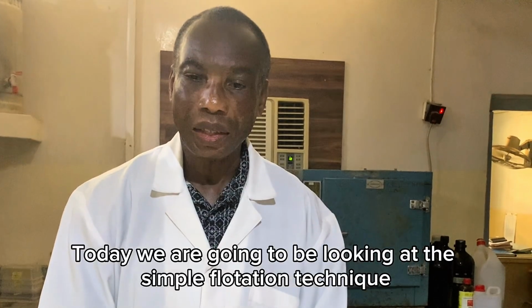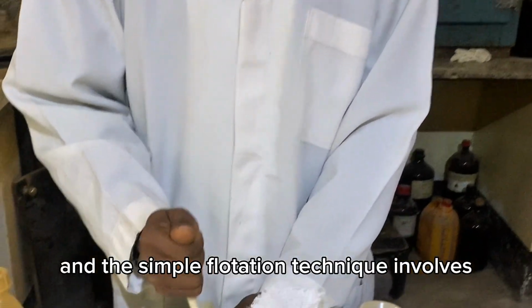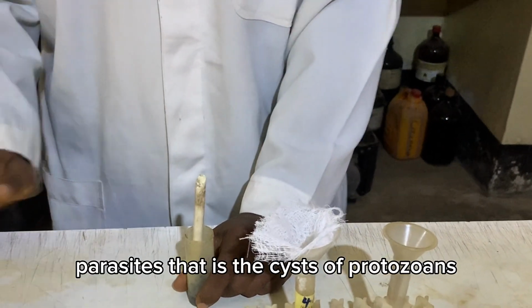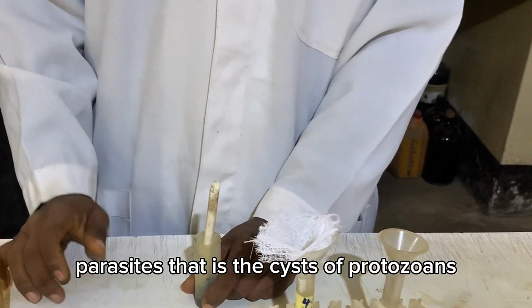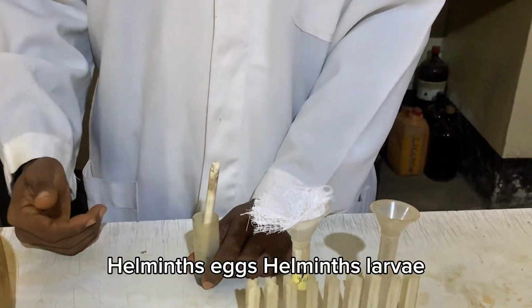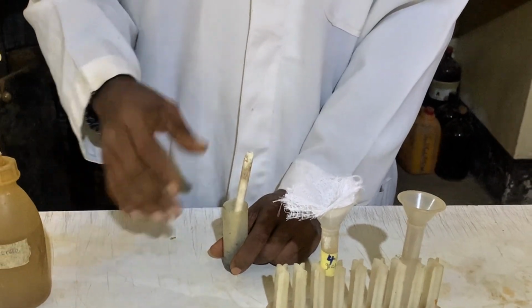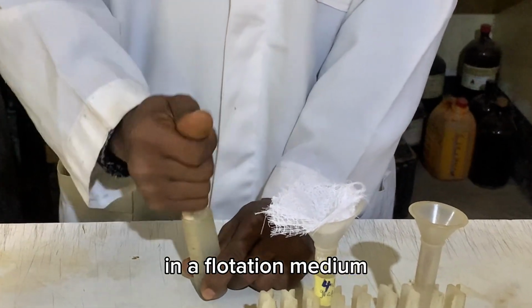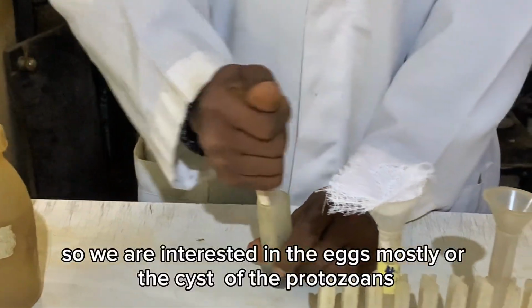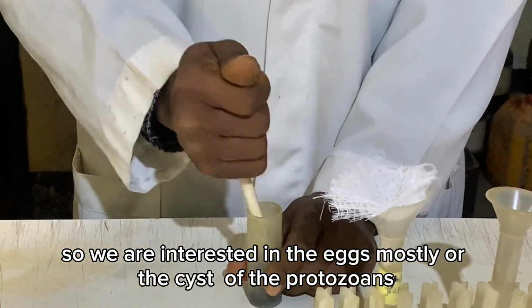Today we're going to be looking at the simple flotation technique. The simple flotation technique involves trying to concentrate parasites, that is the cysts of protozoans, the oocysts of protozoans, and also the helminth eggs and helminth larvae, in a flotation medium. But please understand that the larvae will not float. So we are interested in the eggs mostly, or the cysts of the protozoans.